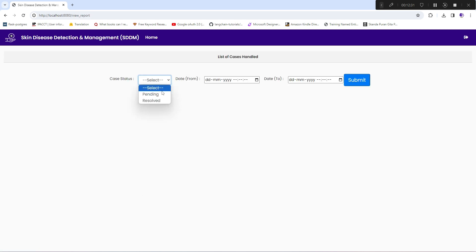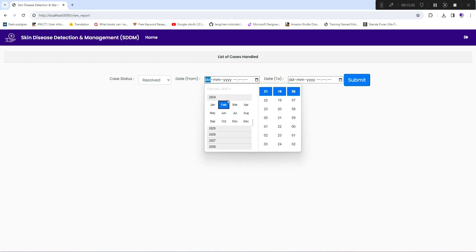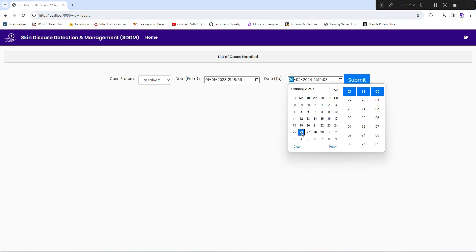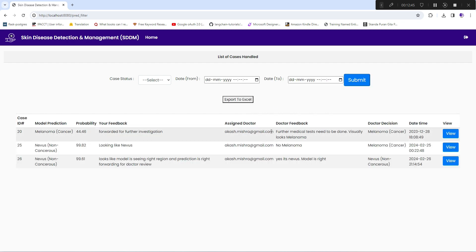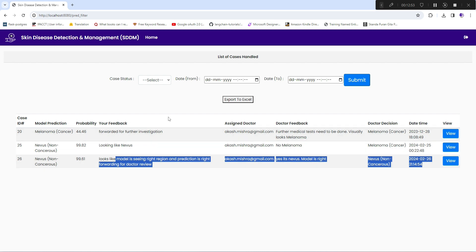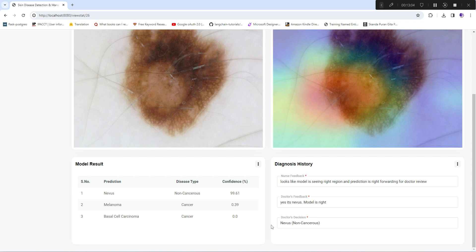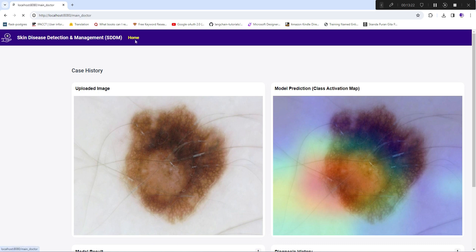In the view report section, the doctor can select resolved cases and view previous cases sorted by most recent or oldest first. Clicking on a resolved case shows the same view but without the option to edit — it is purely a reference for the doctor to review previous case history, including the nurse's feedback, the doctor's own feedback, and the final decision.